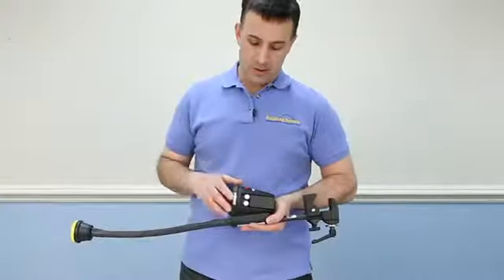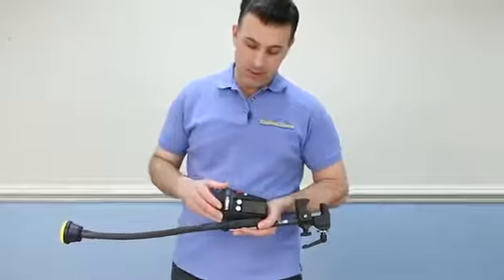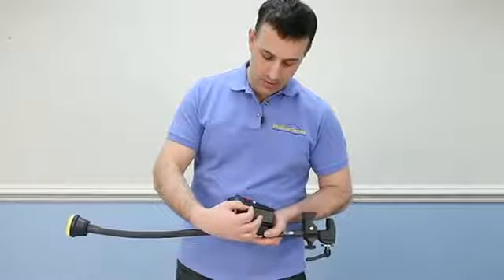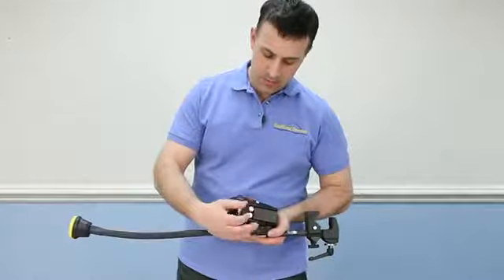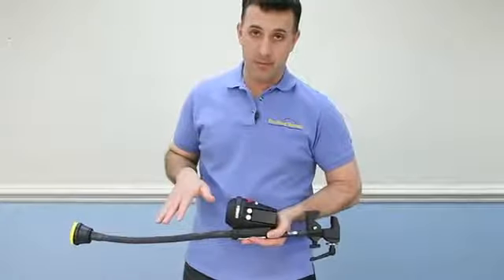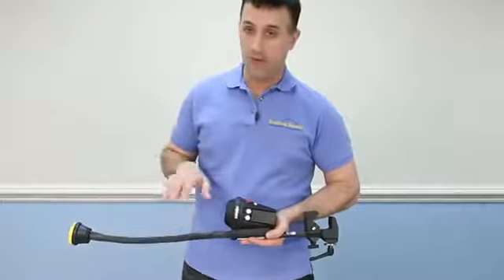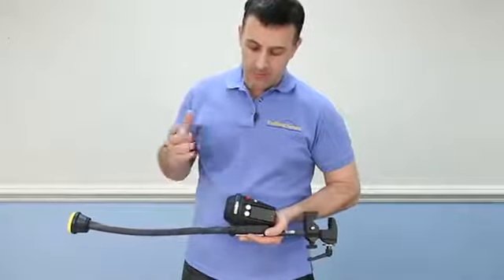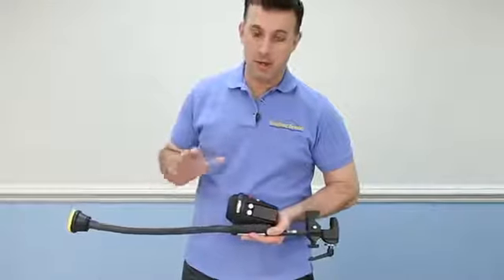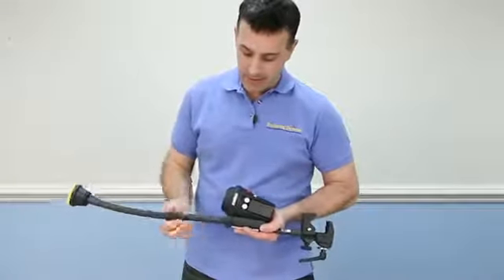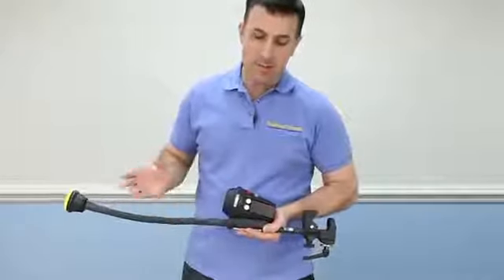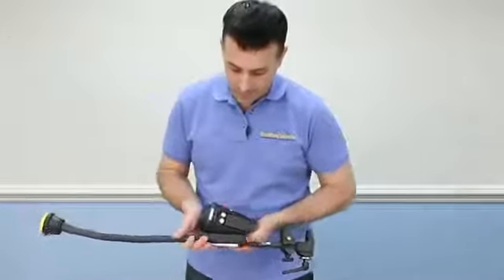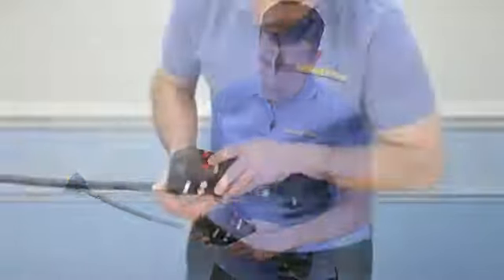Now I'd like to show you how to record all your levels and your messages on the device. What I like to do myself is when I first turn it on, I like to record all my level messages first and then go back to each level and then record the appropriate choices. It just gives me a better way to make sure that I'm in the right level and that I don't have any mistakes. That's a common mistake people try and do one at a time and then they may get out of track there.